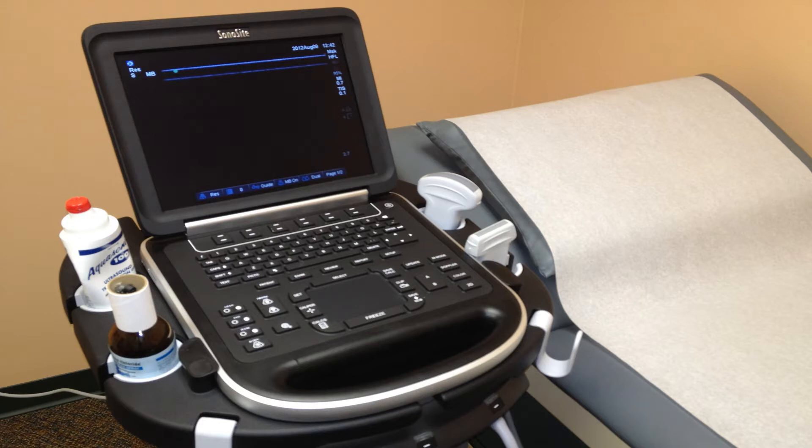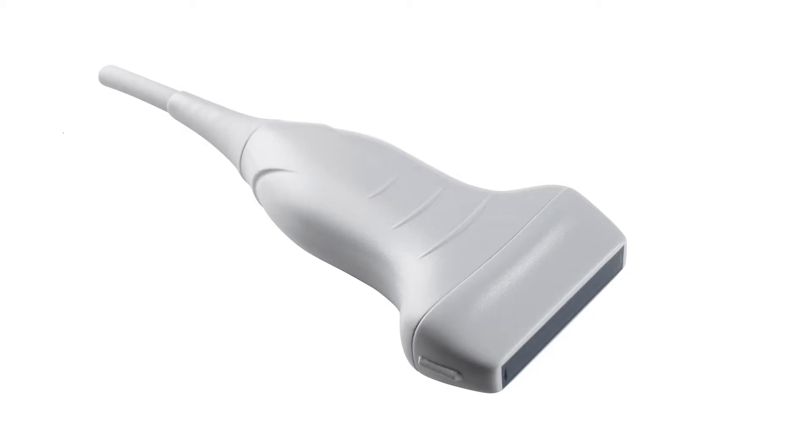Here's the stuff you need. First and foremost, you need an ultrasound machine. The brand is irrelevant, but you really need to make sure that you have a high-frequency linear probe. You want to make sure you're able to get a Venous Access setting on there because that'll help you get the best picture. Some fancy systems also have the ability to help find the needle and dynamically guide you down — in practice I don't know how well that works, but know it's a possibility when you are in the market for a new machine.